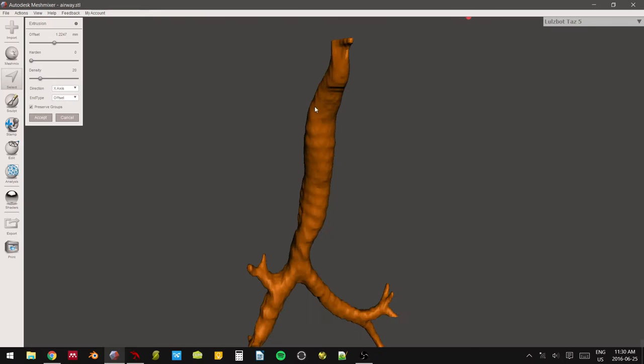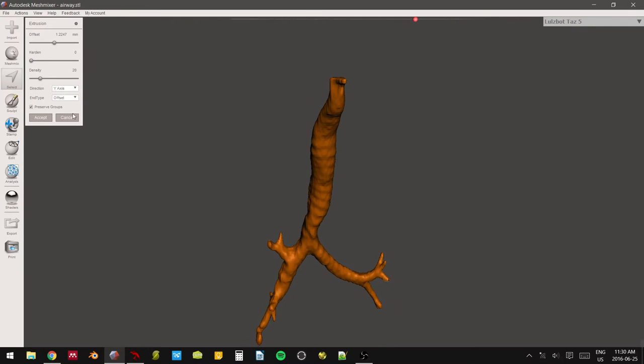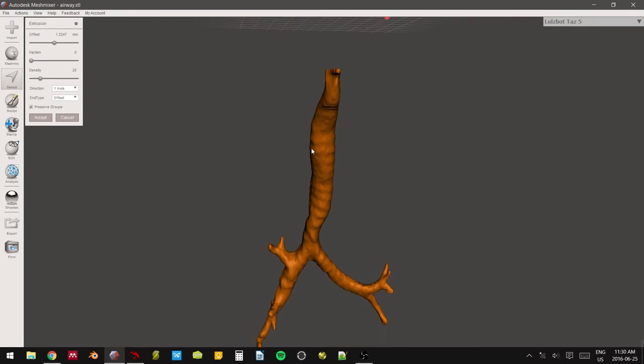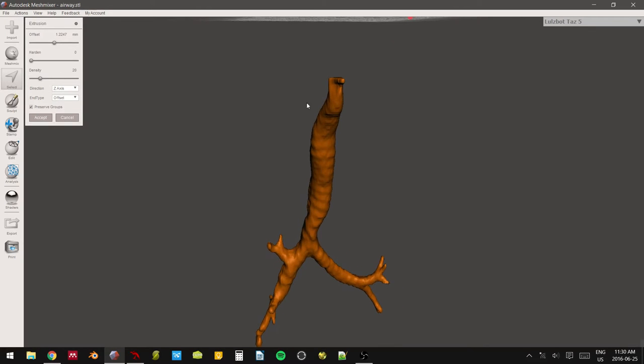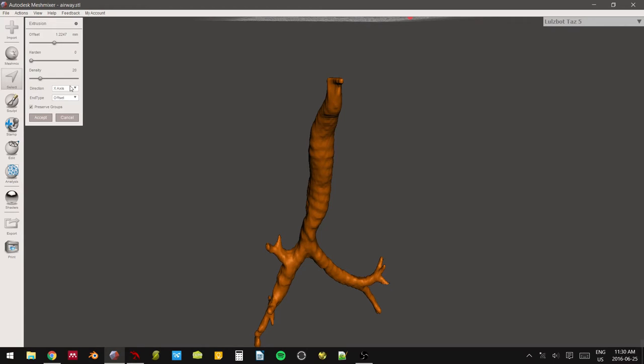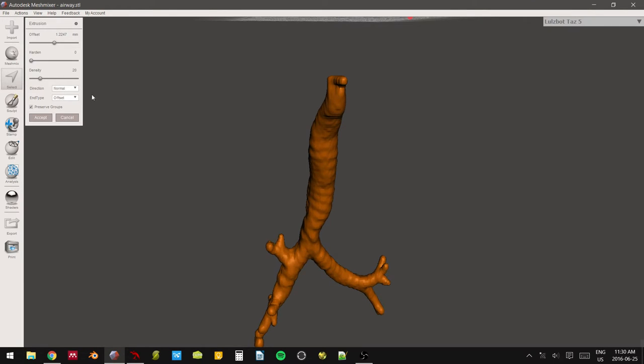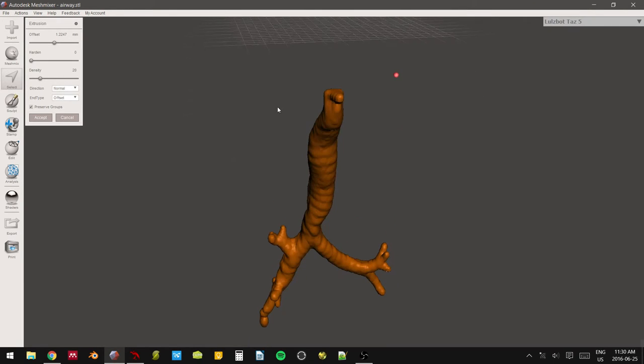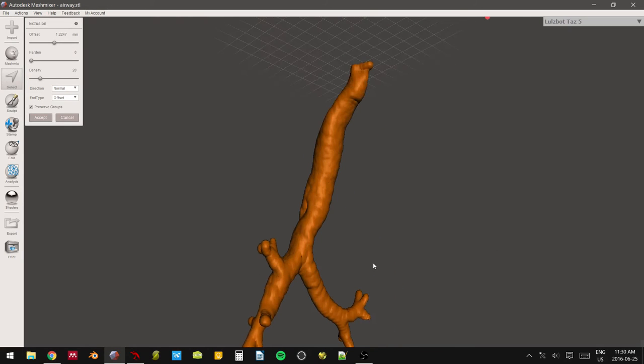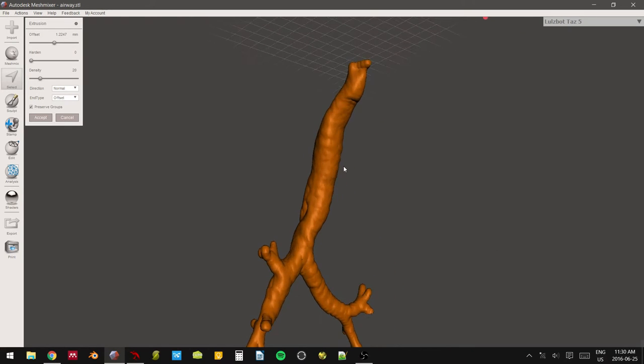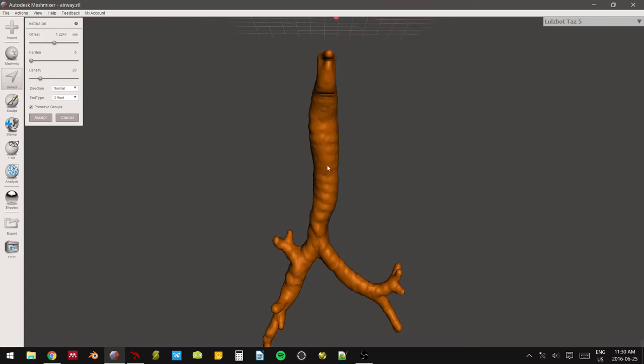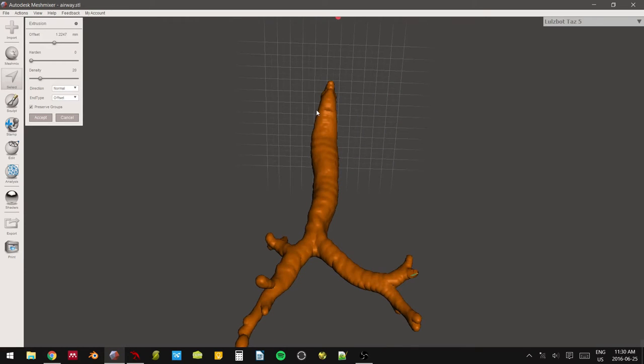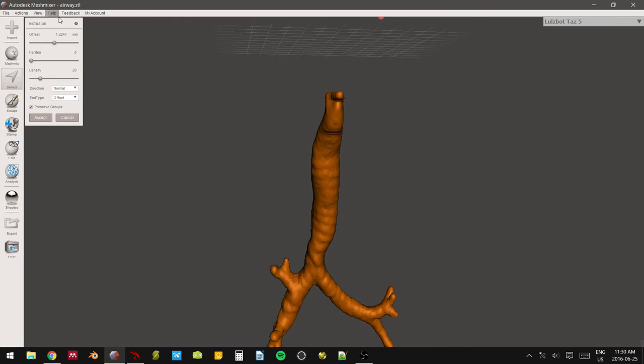The y-axis corresponds to the y, obviously, and the z also at the z-axis. So you can see it just moving around the screen. We don't want any of those, and we definitely don't want constant. We want normal. So normal expands it everywhere in every single direction. This way, we have a homogenous thickness that's been added to all dimensions. So this is going to act as our pseudo-cartilage in this case.